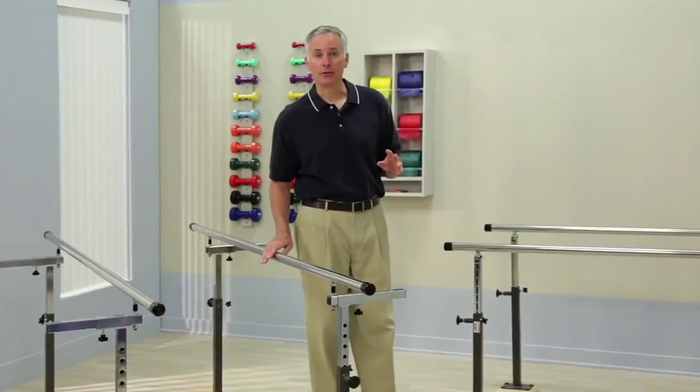While most people's idea of parallel bars comes from gymnastics competitions, parallel bars play a much more serious role in the lives of many people both young and old every day. Parallel bars used for physical therapy is serious business and designing and building them right is Clinton's business.